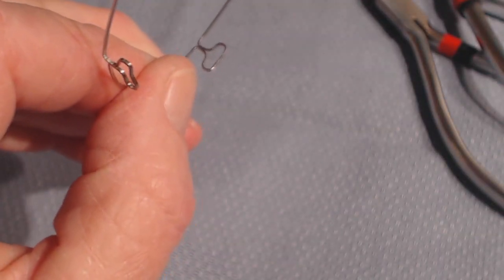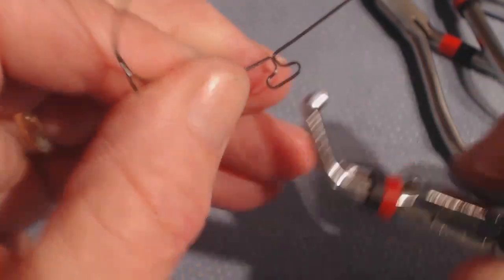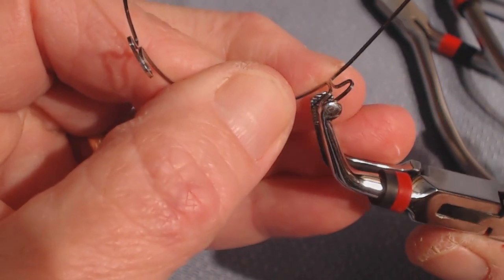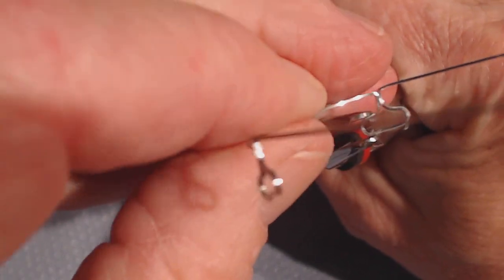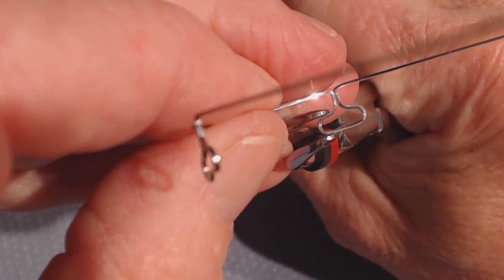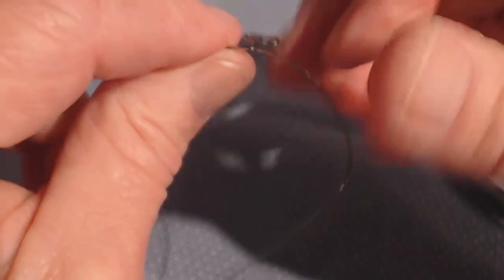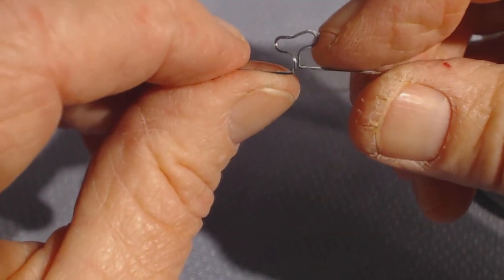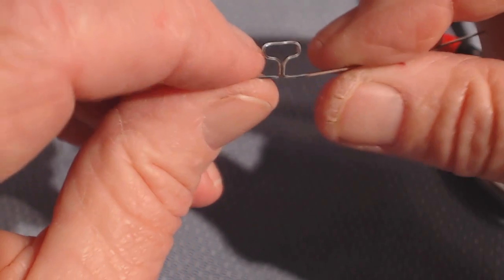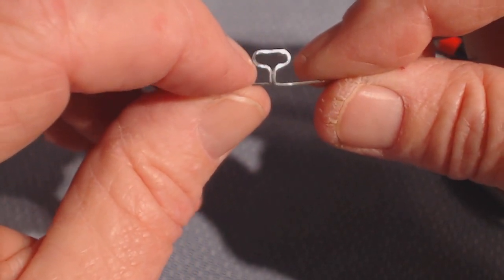Another method is a how plier. I'll put that how plier on here and show you again. Some guys like to use it because it doesn't slip as much. I wouldn't do this bend. You're supposed to just intrude the front section and look similar to this as an outcome. But what happens very often is it detorques the daylights out of the wire.